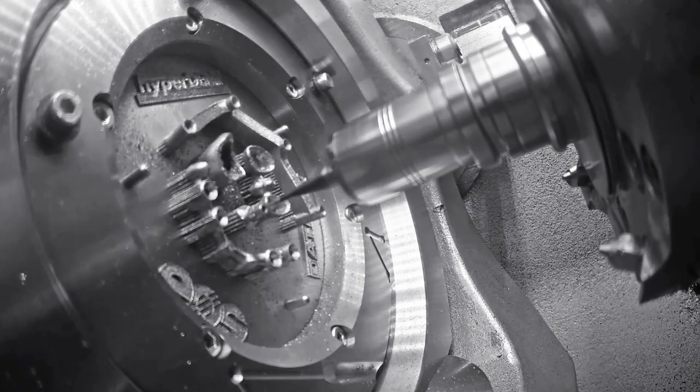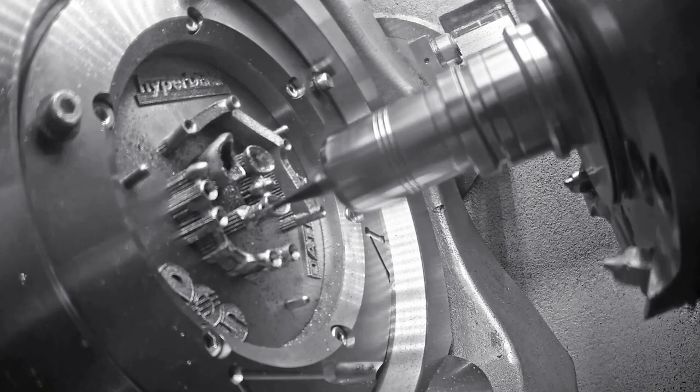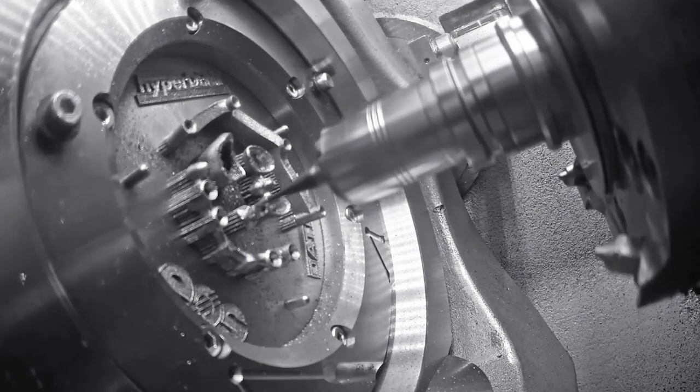High-precision post-milling of individual abutments, cavities from secondary constructions, crowns, bridges, and screw-retained bridges.